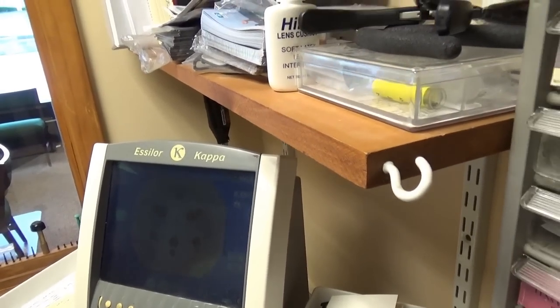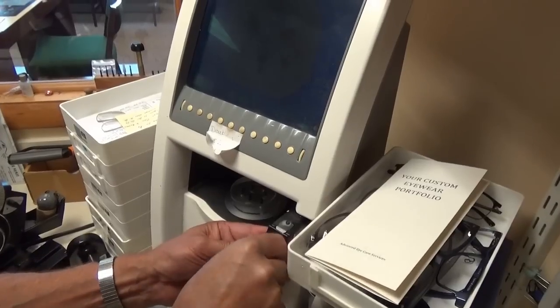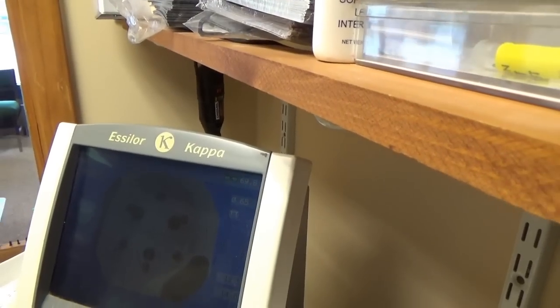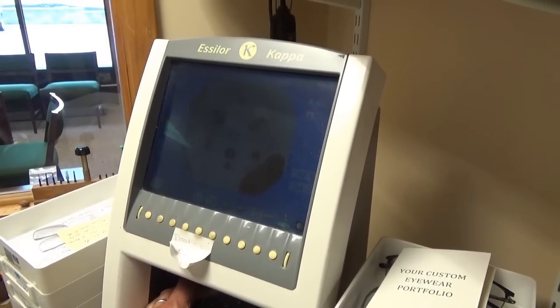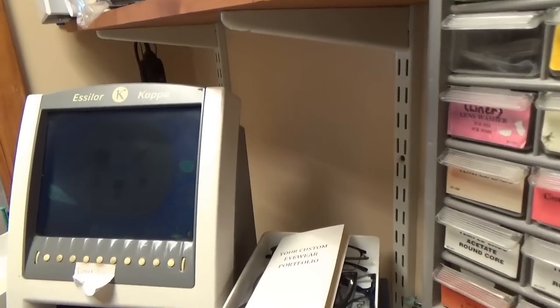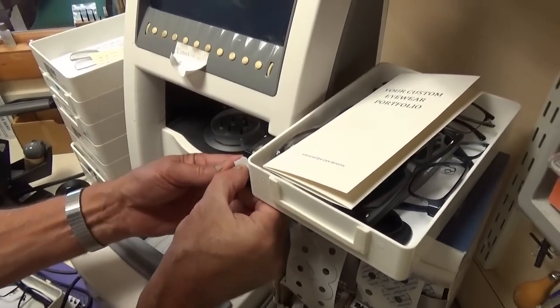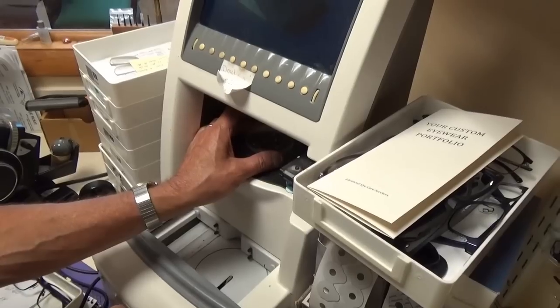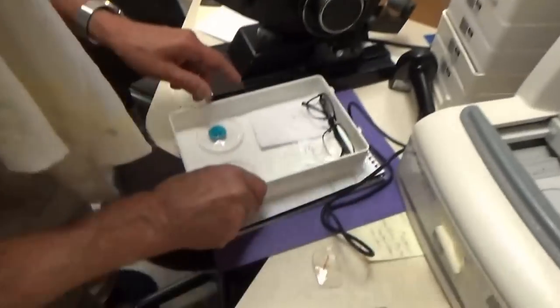I'm getting an idea of how this whole system works together. It's a little sticky, and the lens kind of bows a bit, so you've got to get it where you want it. That looks pretty good — I'll push that and come over to block up the lens. Now I want to switch to the left eye. We always do the right eye first. You have to put your sticker on a certain way because you don't want it to interfere with any of the other processes. Line that one up, bring it over, block that one up — now we're done with that machine.